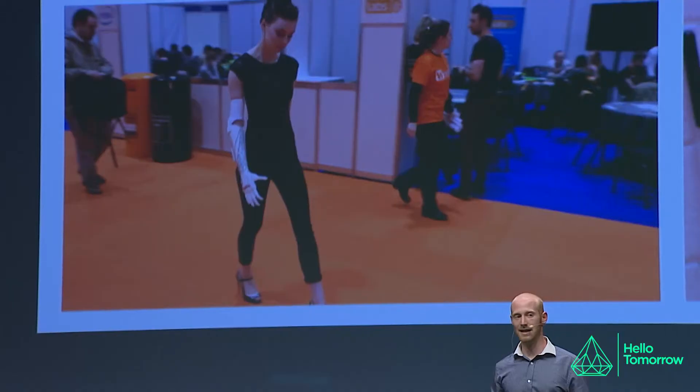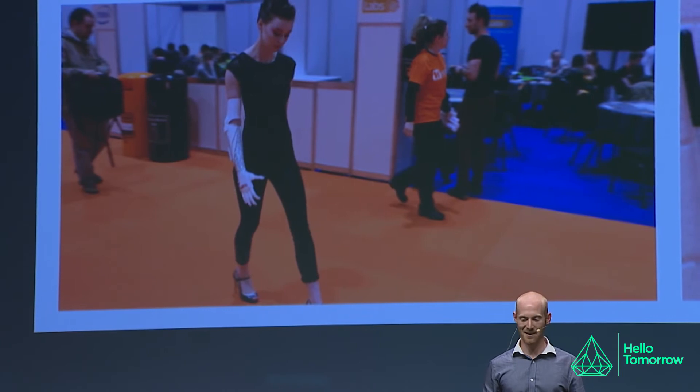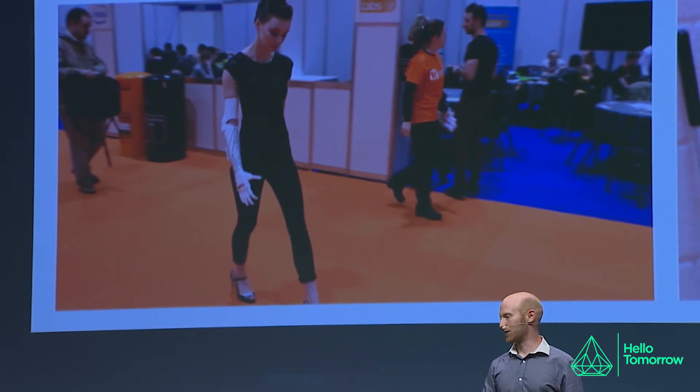This was a way to try and give Grace some individuality in her prosthetic. She's a congenital amputee — she was born without her right hand. She's never worn a prosthetic, never needed one, and still doesn't need one. The only circumstances under which it would be of use to her is if it looked really, really cool so she could wear it on a night out and show it off to people. And so this fit the bill for her.